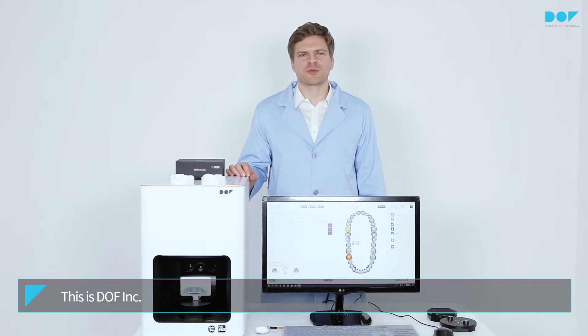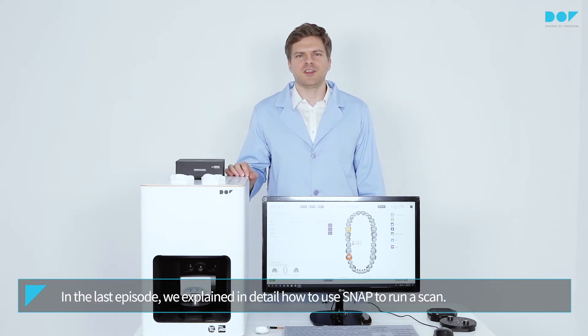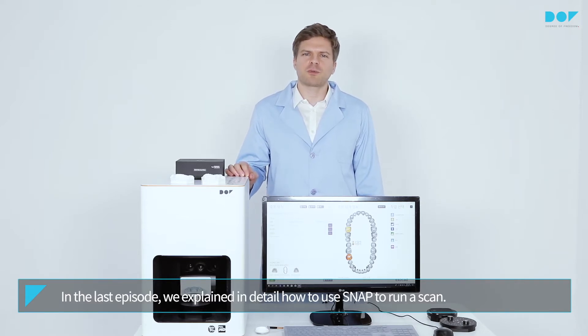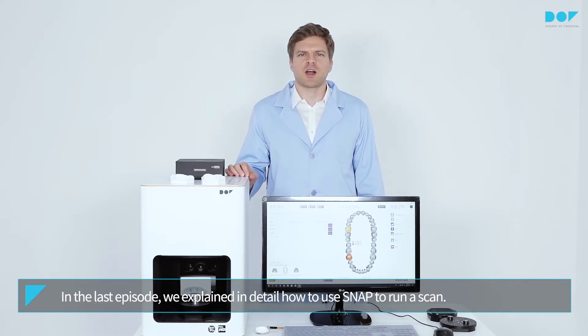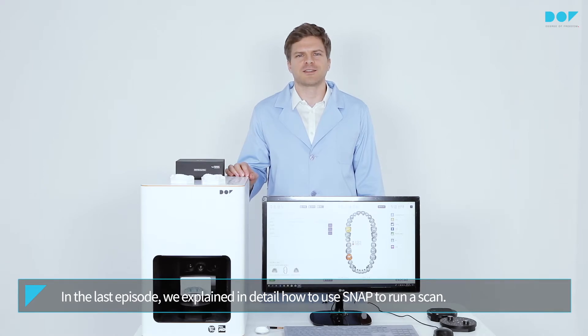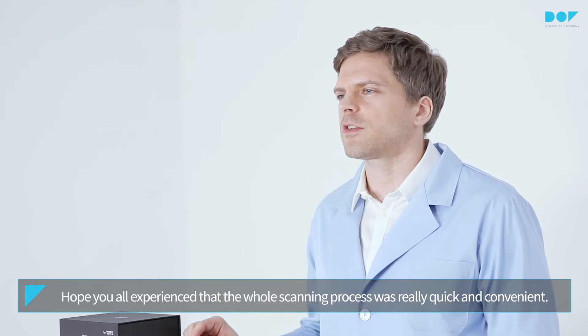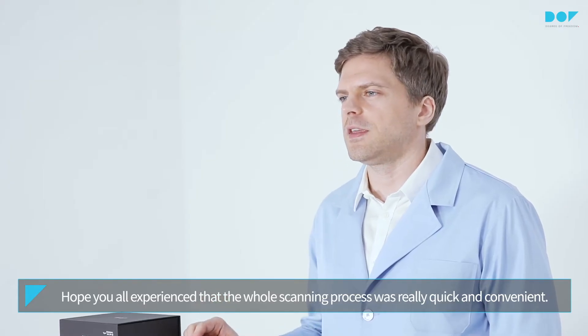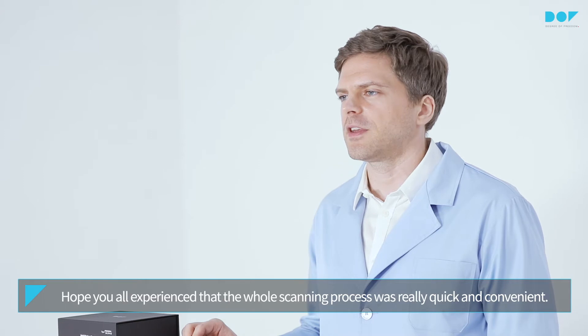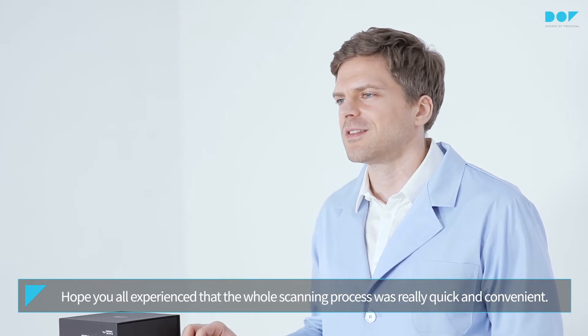This is DOF Inc. In the last video, we explained in detail how to use SNAP to run a scan. I hope you all experienced that the scanning process was really quick and convenient.